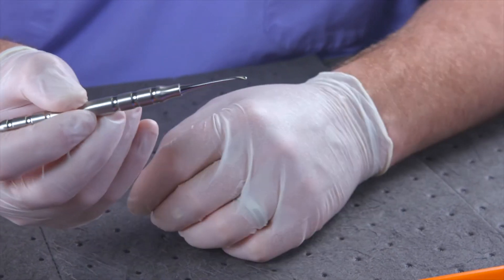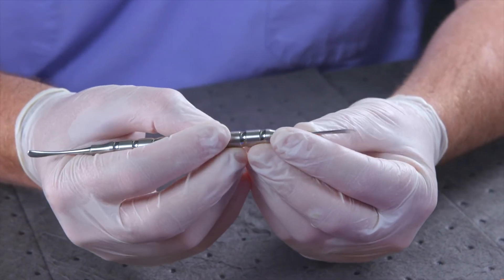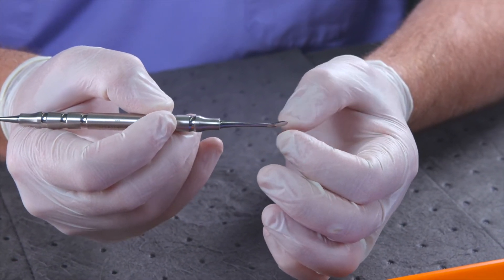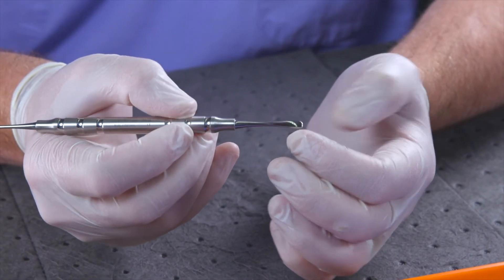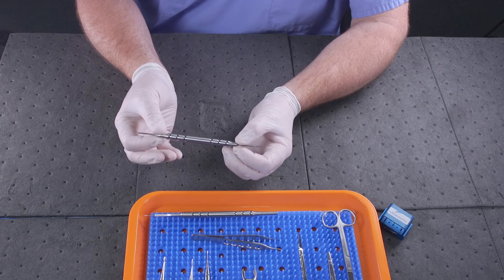The elevator curves throughout the last portion of the shank so that the blade can always stay on the bone to peel away the soft tissues. The cross section of this instrument is also very slim, making sharpening easier to perform, so we have a razor-sharp instrument that will do a fabulous job of raising and elevating our soft tissue flaps.